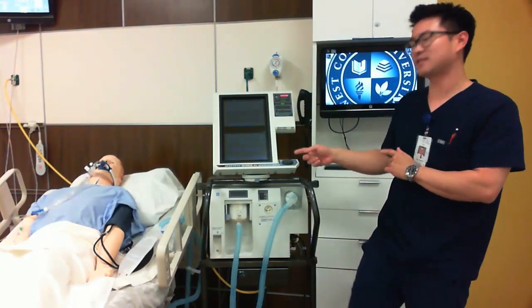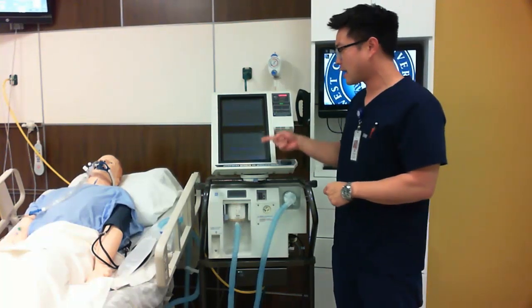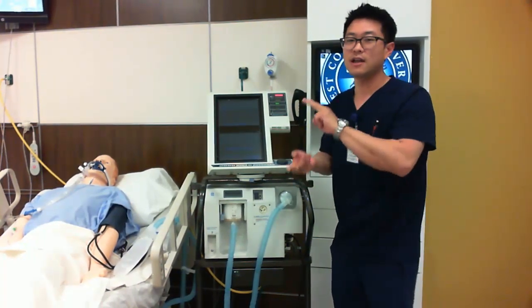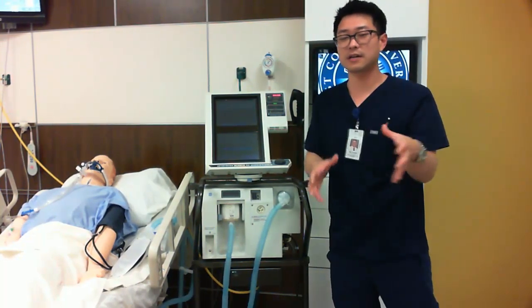To this section we're going to be talking about the ventilator. And in particular, there are a couple buttons here that we will probably want to review, being hyperoxygenation and muting the alarm.